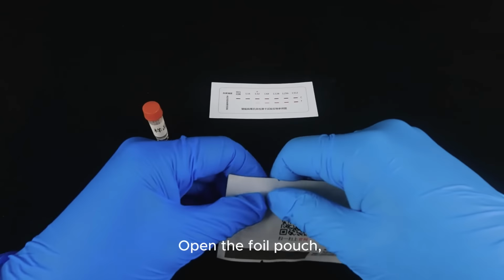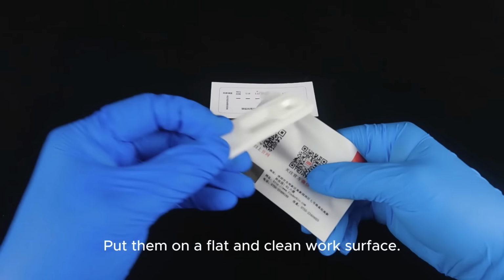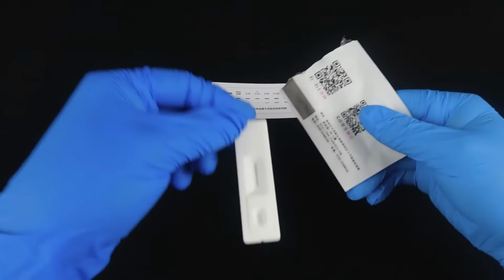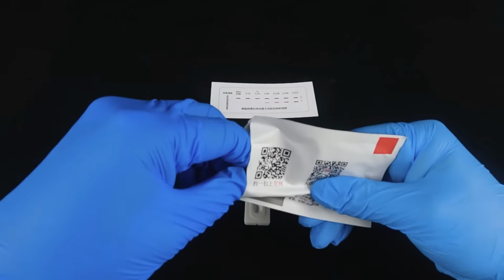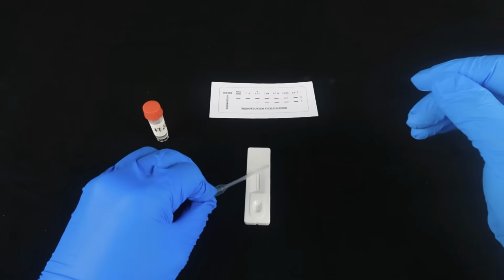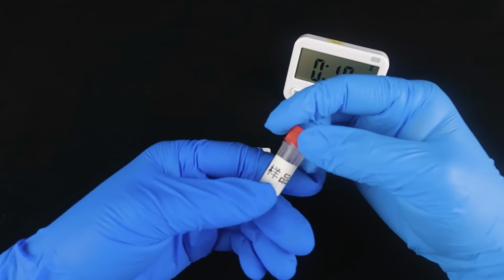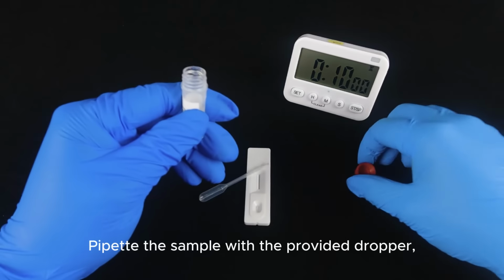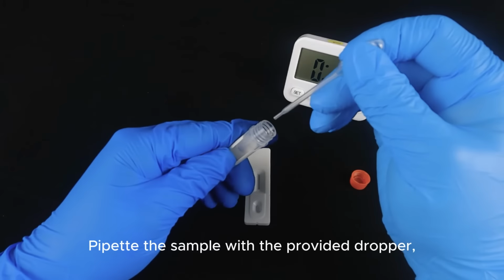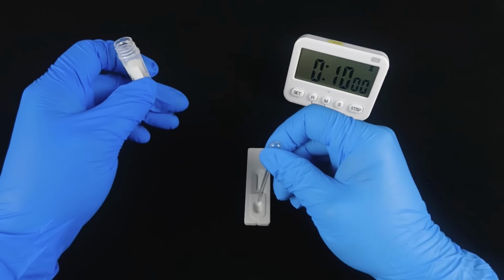Open the foil pouch, take out the test card and the disposable dropper. Put them on a flat and clean work surface. Pipette the sample with the provided dropper, then add 6 drops vertically and slowly into the sample hole S.